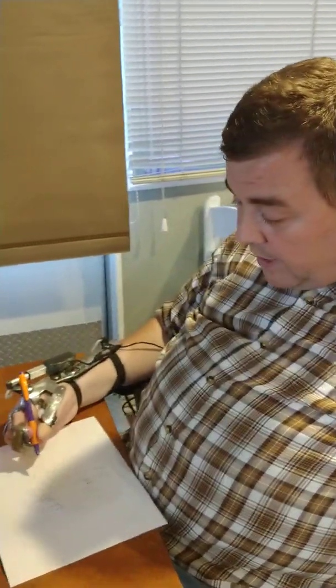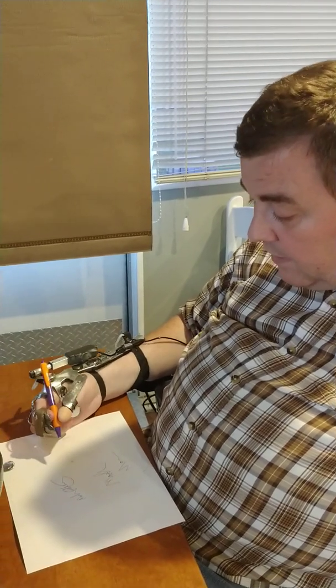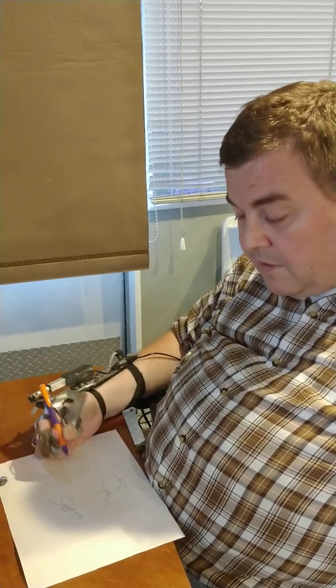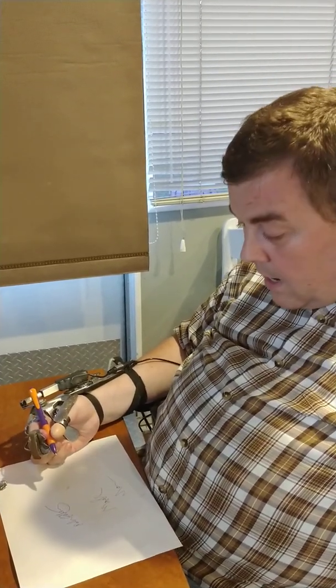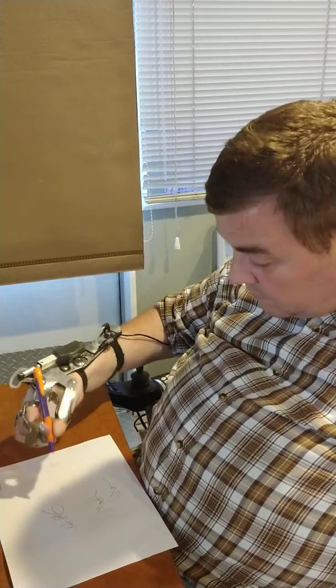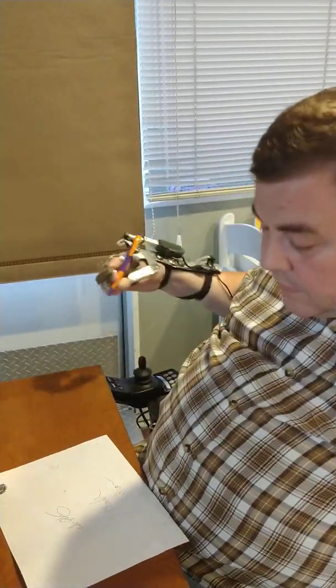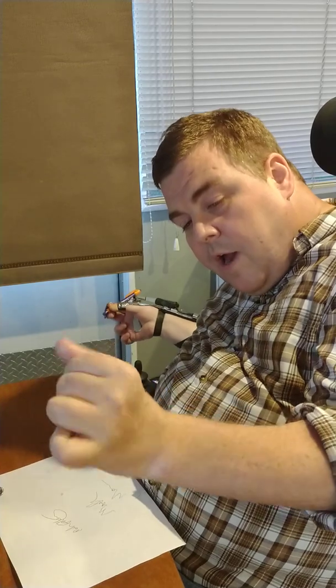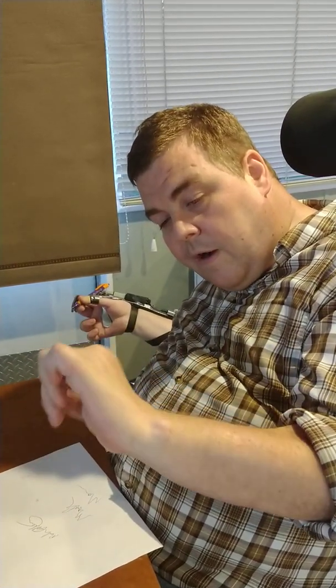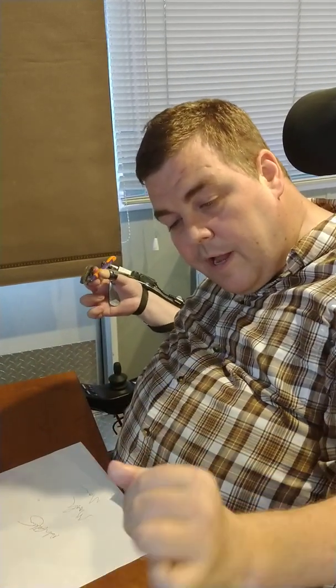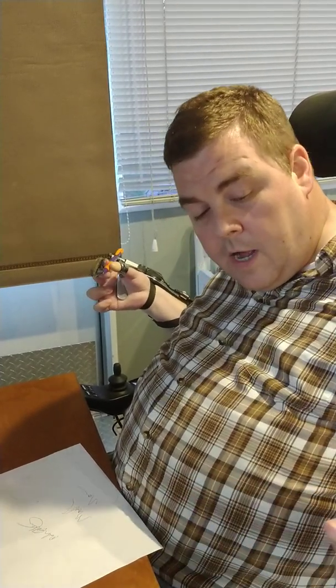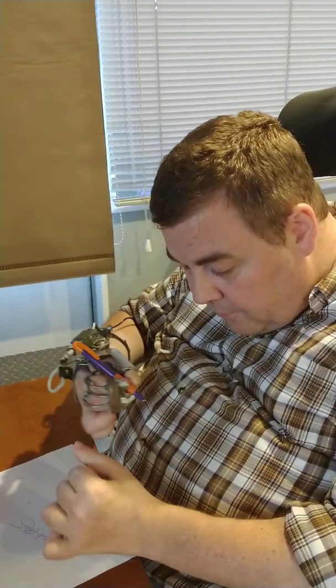Again, I have not practiced with the Neomano more than 20-30 minutes and I've been using this for 17 years. But there is a significant functional difference there. Probably with some adjustments, maybe sizing, maybe some tweaks to the thumb grip, those things might be improved. And also stabilization of the wrist, or I could use it on this hand where I had the tendon transfer and I have some control of that wrist. And that might work a little better and have the full-size thumb.